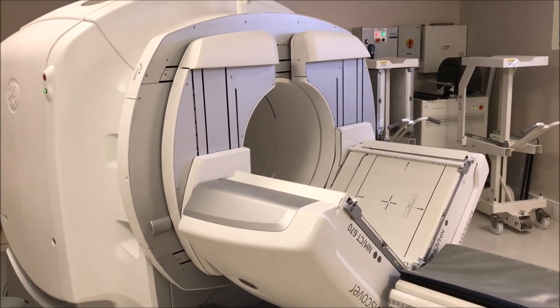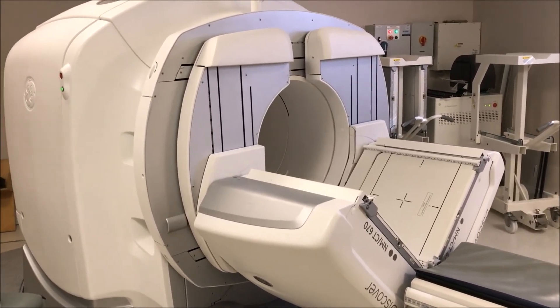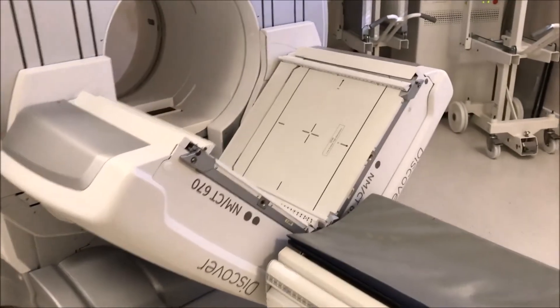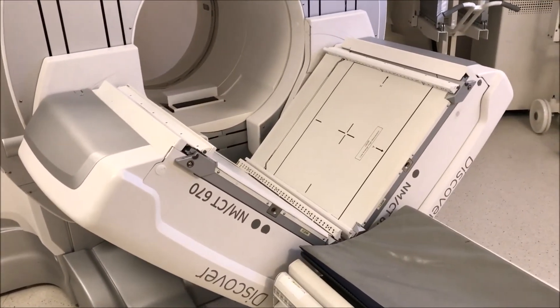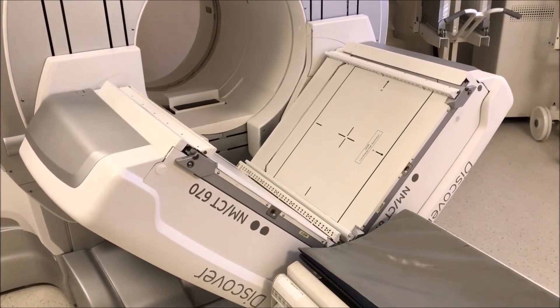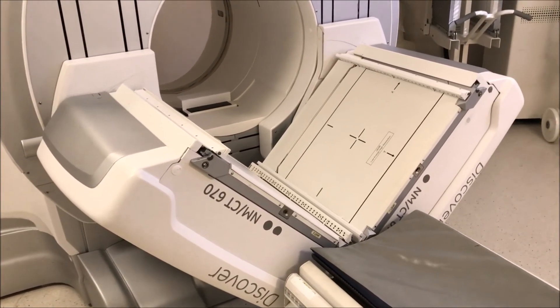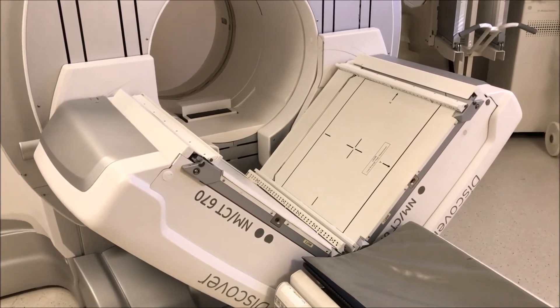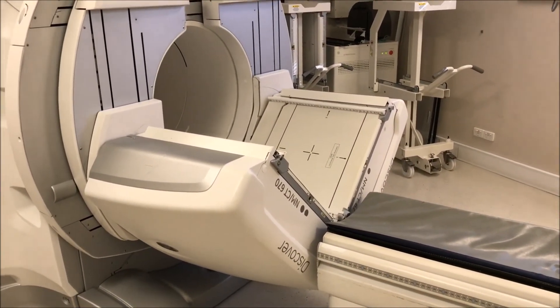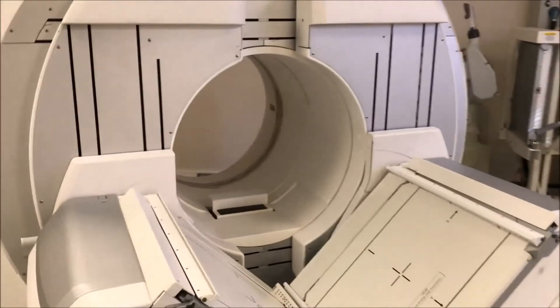After the GE Hawkeye came out with its low-resolution CT rotating X-ray tube, this is the GE Discovery. You can see the two gamma cameras — two detectors — as part of the gamma camera in an L-configuration. They can actually be opposed like the Siemens ECAM, but in the L-configuration it's used for cardiac scanning because the heart is at the front left of the body, so data is collected from only half the patient's body, making it a bit quicker. It's quite a big bulky system because it has the two-headed gamma camera at the front on a really stable gantry for SPECT.